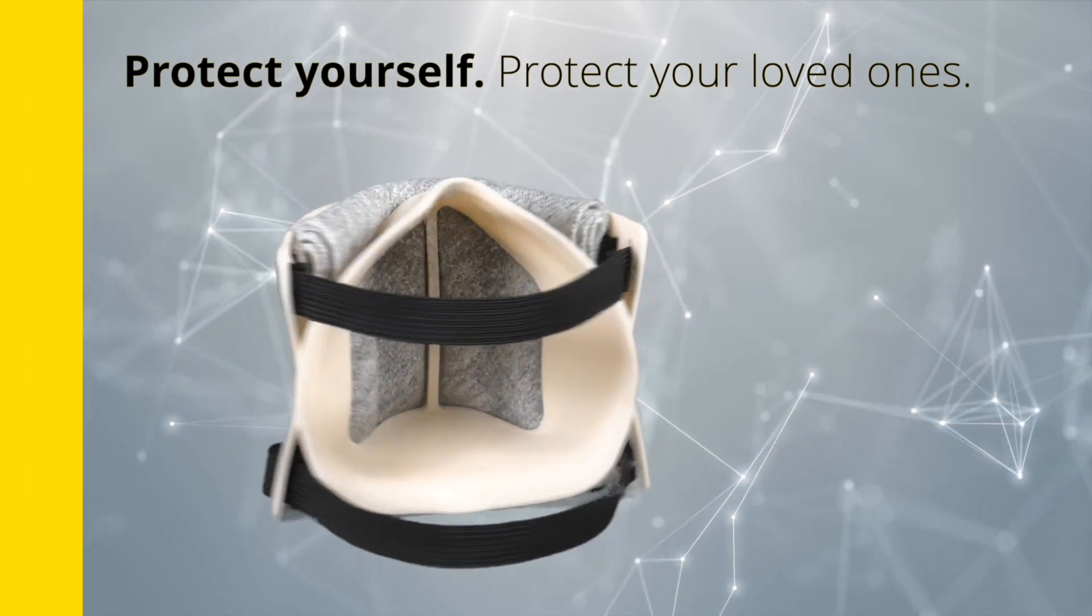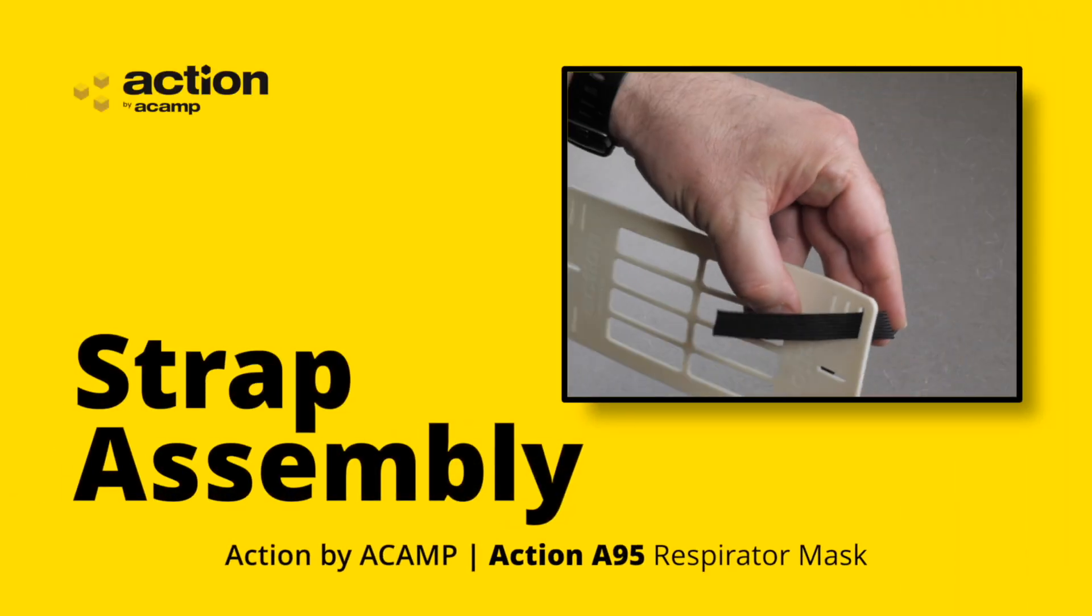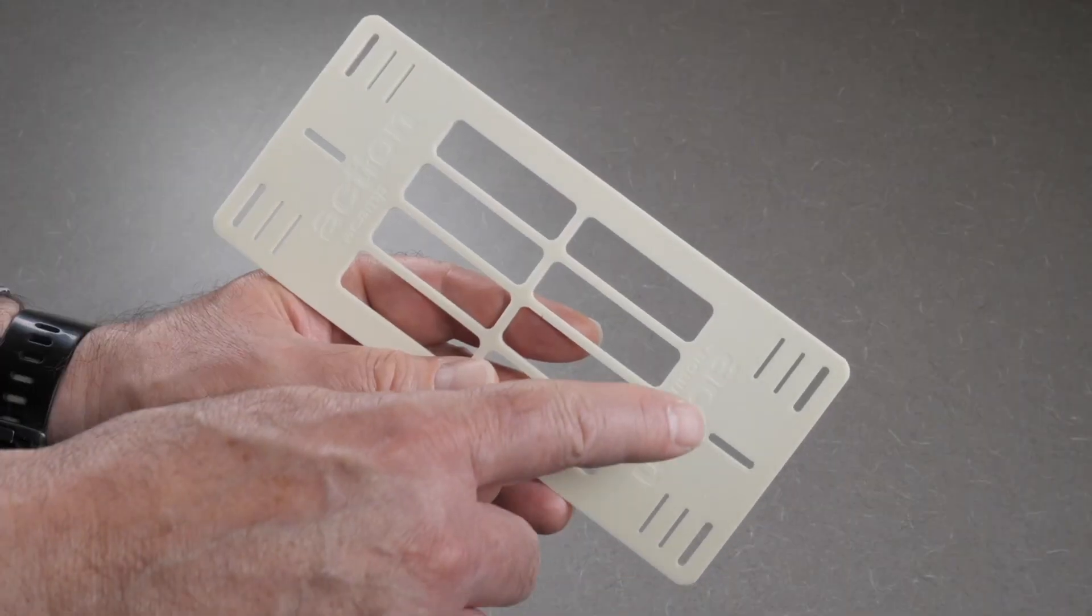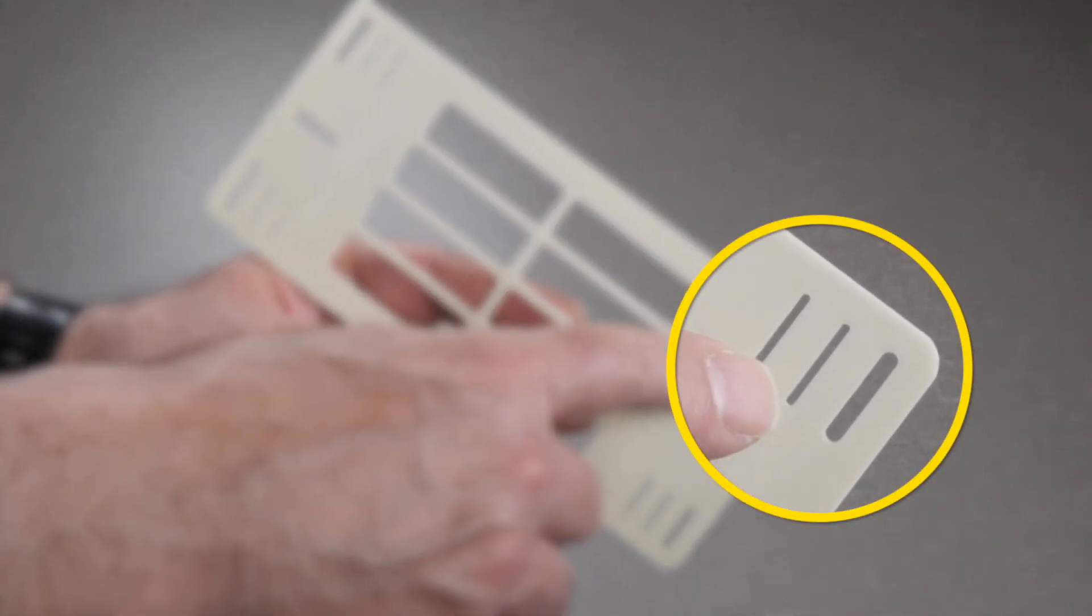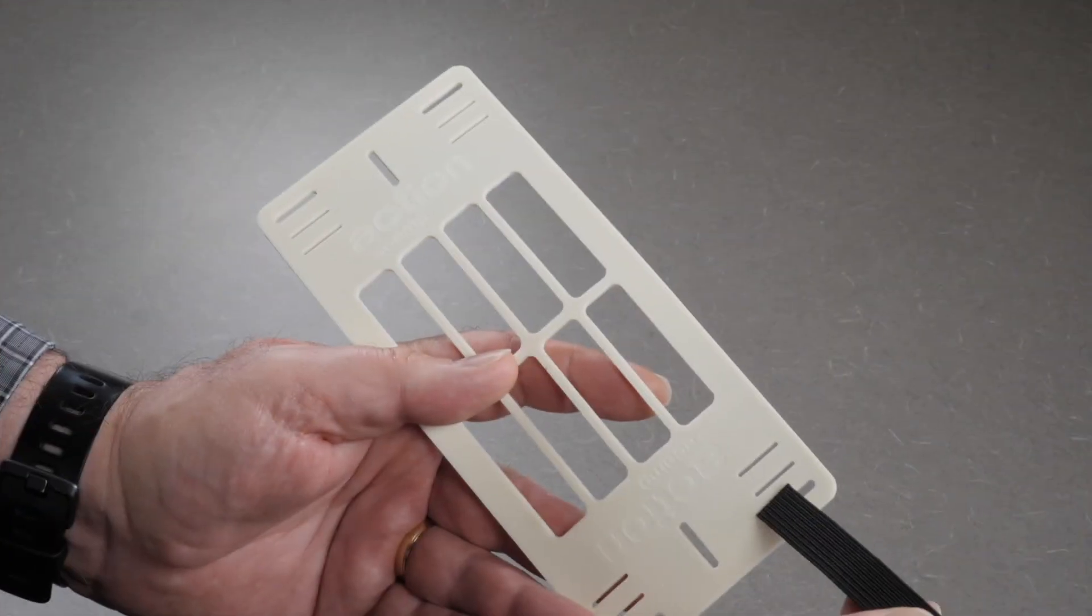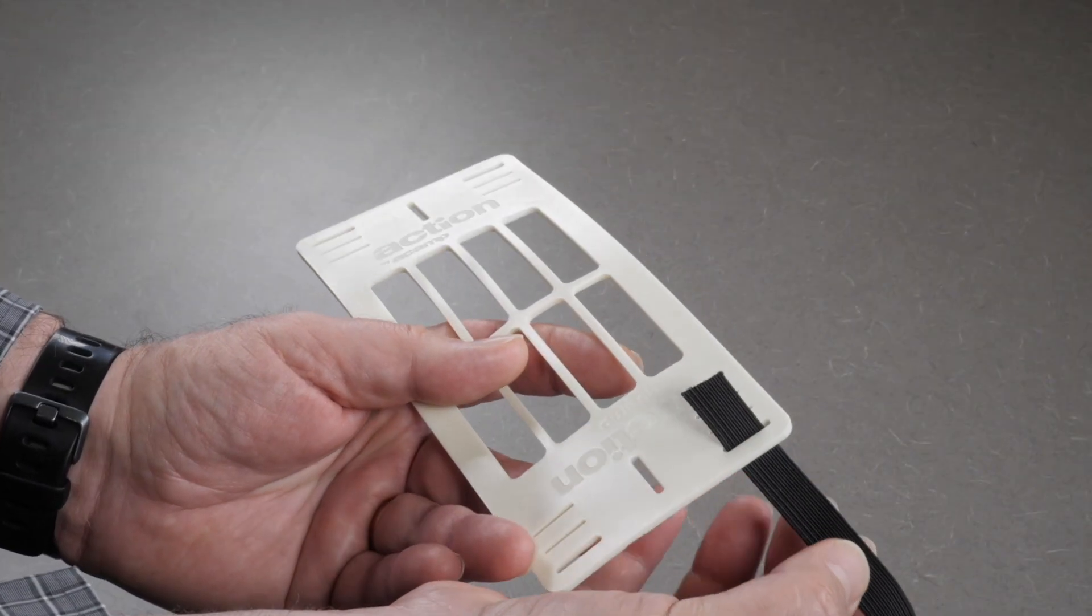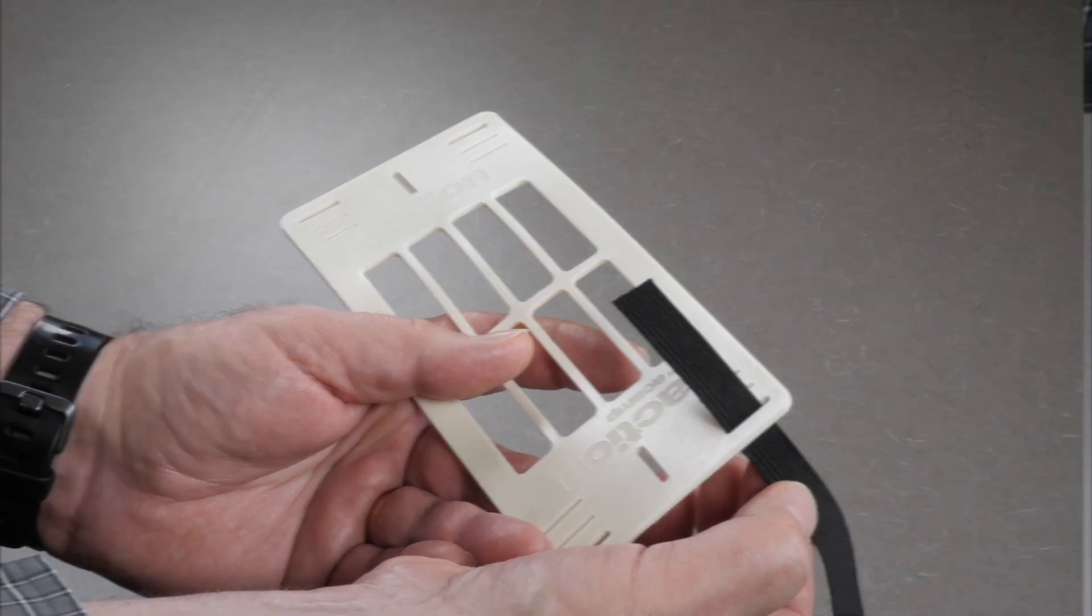There are three cinching holes in each corner of the cover. You can either loop the elastic from the outside in or the inside out. I prefer the inside out as I will demonstrate.